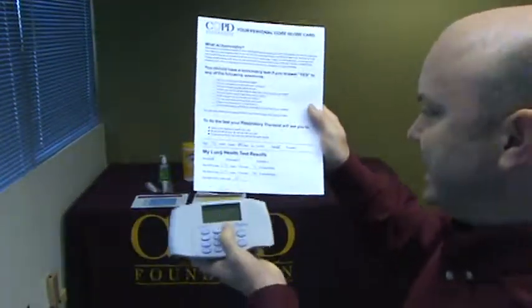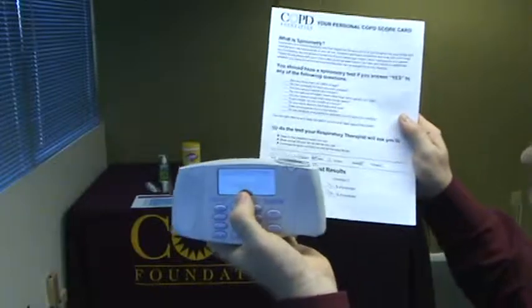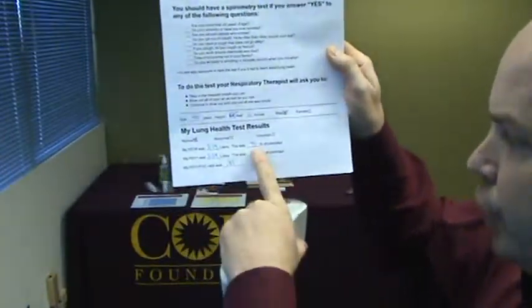We're going to take a closer look at the results. We're going to see the FEV6 — for all intents and purposes, when we use the term FEV6, it's the forced expiratory volume in six seconds. It's a fair equivalent for FVC, forced vital capacity, so these two numbers are somewhat universal. For screening purposes at the event, it's easier to get a six-second blast than a complete forced vital capacity maneuver, which may take up to 15 seconds. For FEV6, you're going to record the value in liters: 3.19 is recorded on the sheet. And then the percent predicted — 71% predicted for my age, height, ethnicity, and gender group — is recorded here.